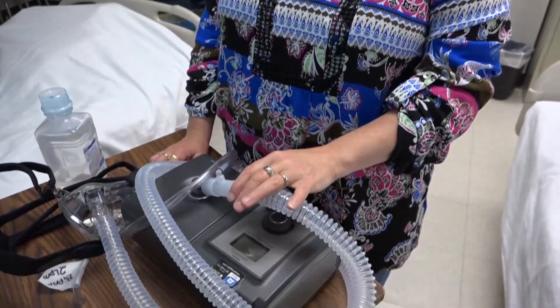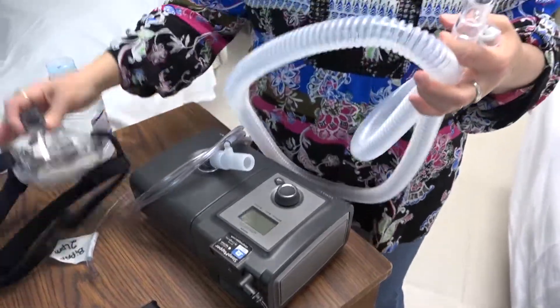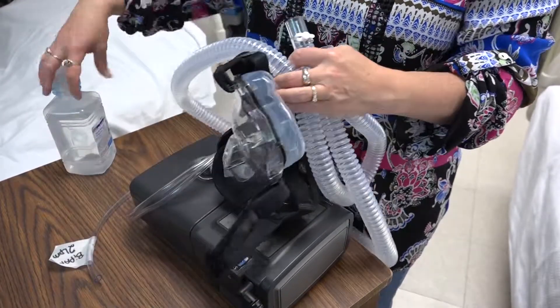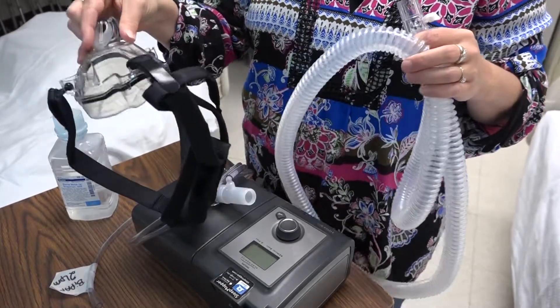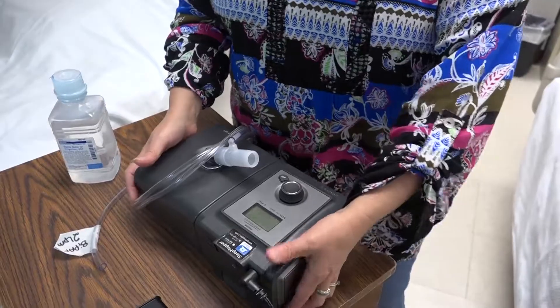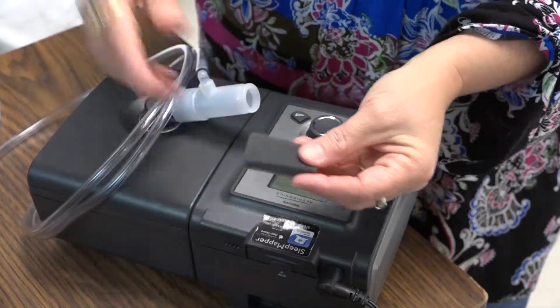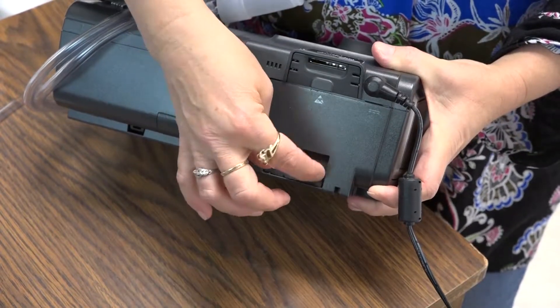For cleaning the equipment, daily you want to take apart the tubing and the mask and wash them. Disconnect the tubing — the tubing and the mask are washed with warm water and a mild detergent, then rinsed with sterile water and hung to dry. Set the mask on a paper towel to dry as well. Every two weeks, take the little filter out of the back, wash it with mild soapy water, rinse it with sterile water, let it dry before putting it back. Every six months, the filter should be replaced.